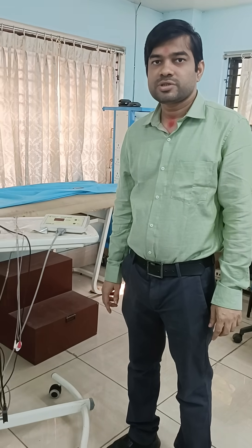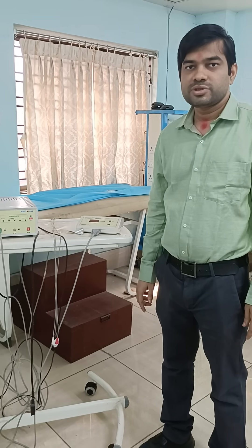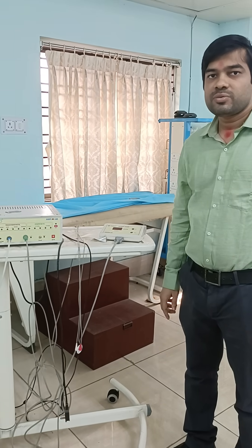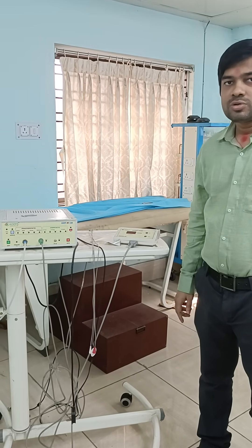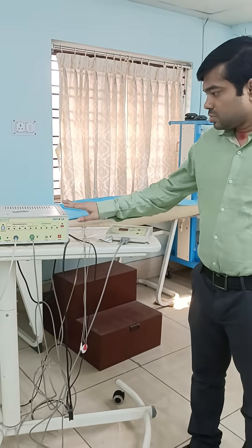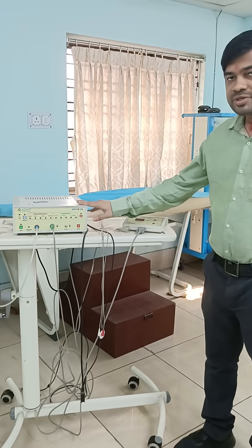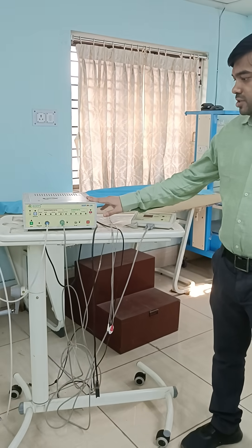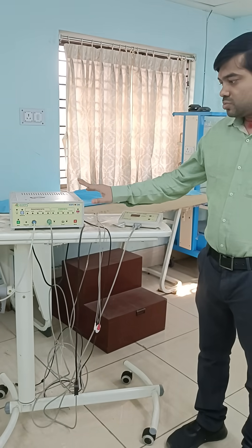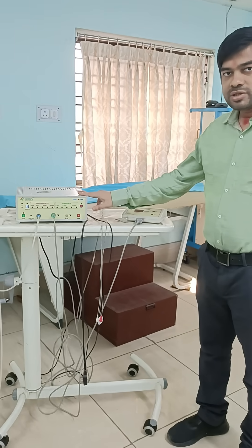Good morning everyone. I am Dr. Satya Brakshaw, MDDM clinical pharmacologist, and today I am going to talk on the cardiac autonomic neuropathy machine and what are the uses of cardiac autonomic neuropathy machines.